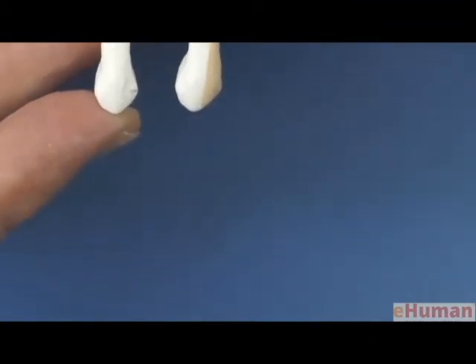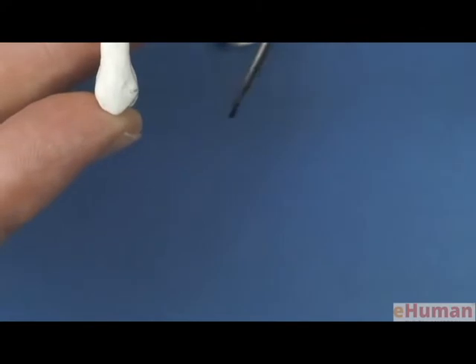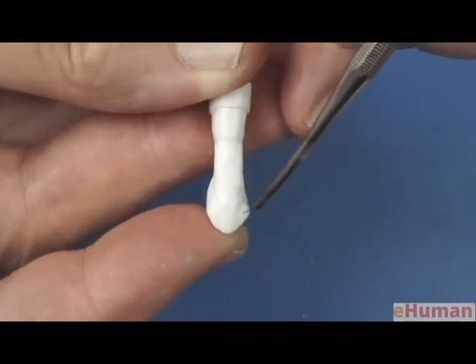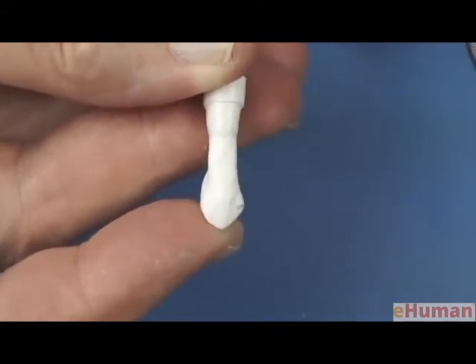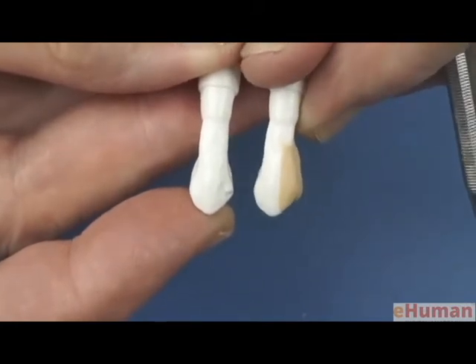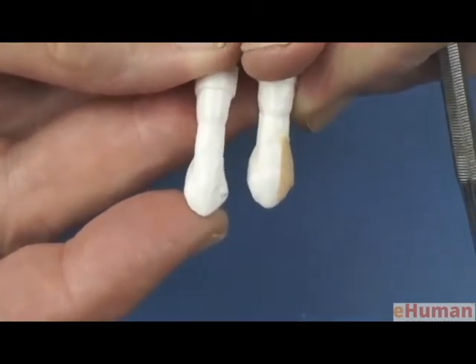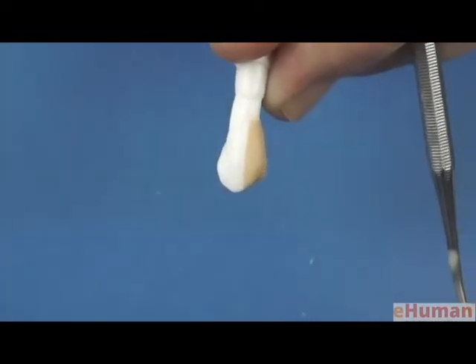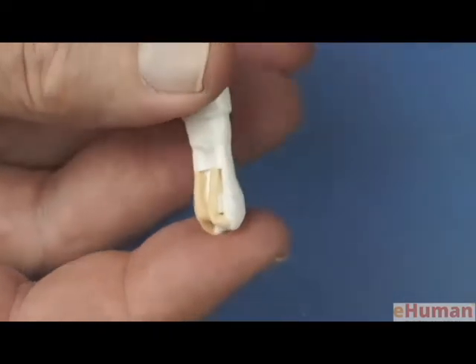You also can notice on the intact tooth, if you go cervical to the proximal contact, you'll notice that there's a slight concavity in the crown of the tooth. So we want to make sure that we'll be able to carve that into the tooth, and I have a little excess wax that'll allow that carving to happen. So now let's move to the lingual portion of the tooth.